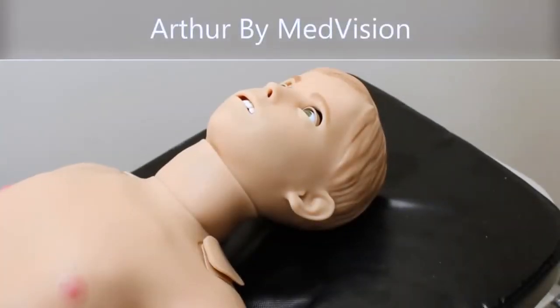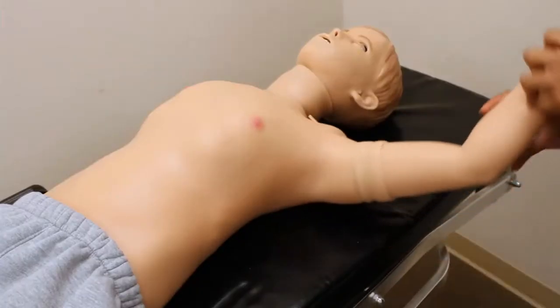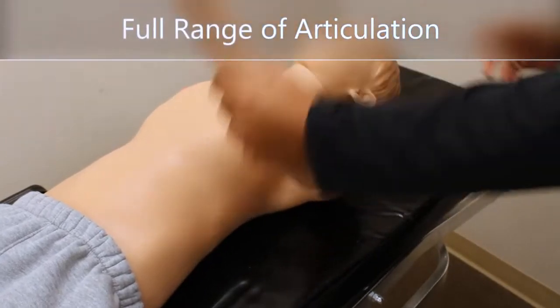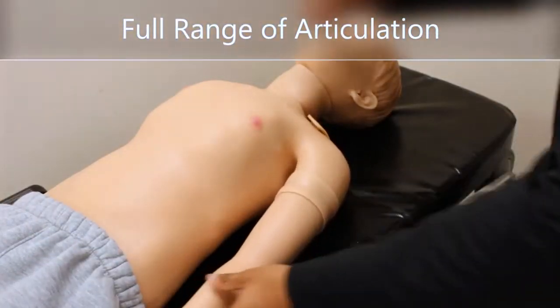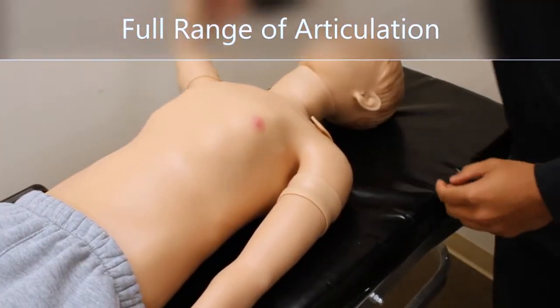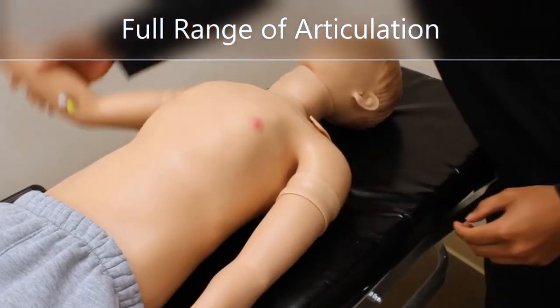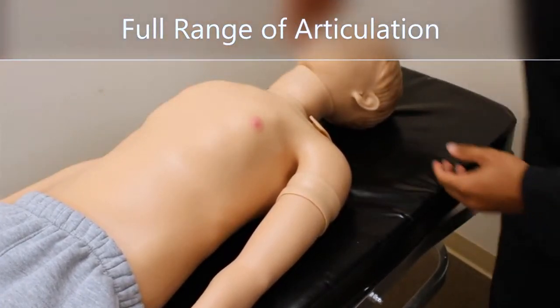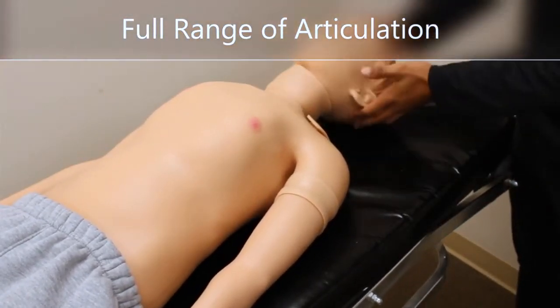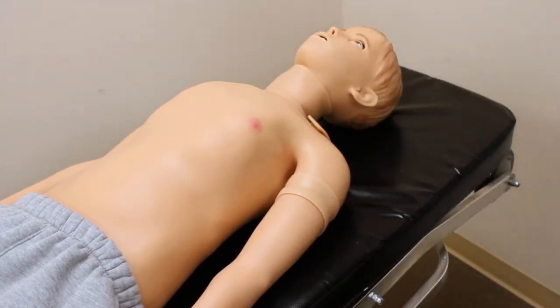Allow me to introduce you to Arthur. Arthur is MedVision's High Fidelity Pediatric Simulator. He can range from ages 5 to 10 and he is the realistic weight and height of a pediatric patient. He has full articulation of his arms, his head, and of his legs.